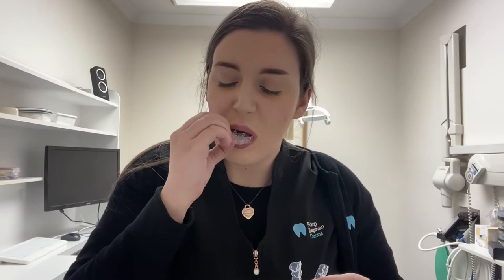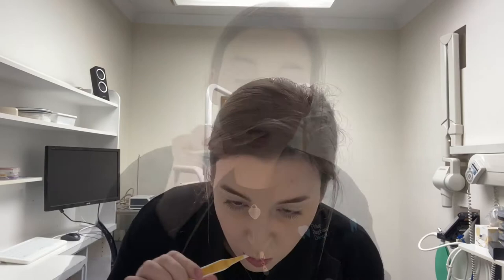It's been about 30 minutes since I put the whitening trays in, so I'm going to carefully remove them and go through the process of what you do once they're out. The trays still have some whitening gel residue left over, as well as what's on my teeth. So I'm going to grab a normal toothbrush with no toothpaste, a little bit of lukewarm water, and just brush off the excess.